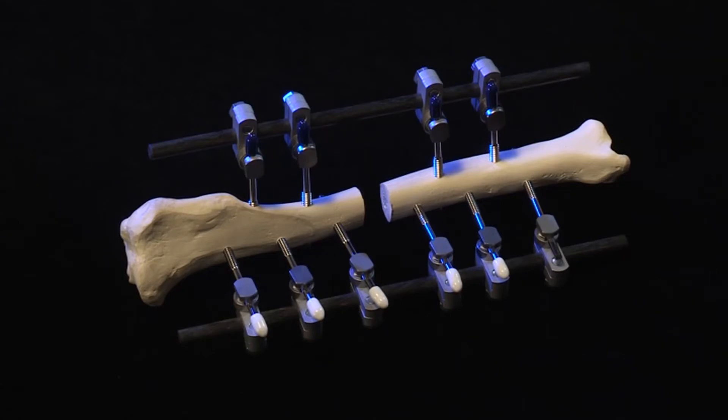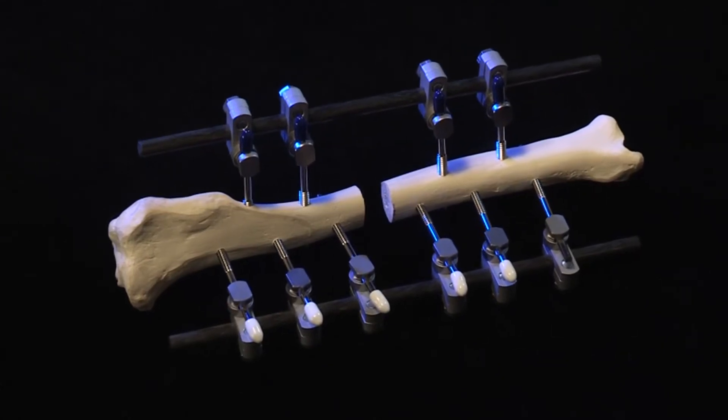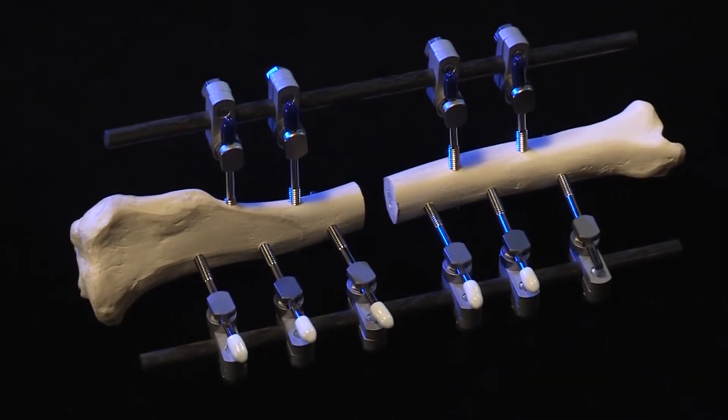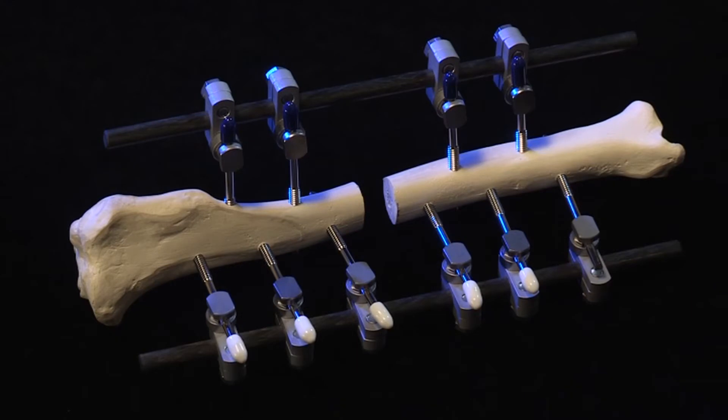IMEX responded by engineering a new modular ESF device from the ground up, thus eliminating the need for complex frames while simplifying the use of modern fixation pins. So I think it was very efficient in both ways, and we have one of the best circular external fixators today in the market for human applications and one of the best for veterinary applications.